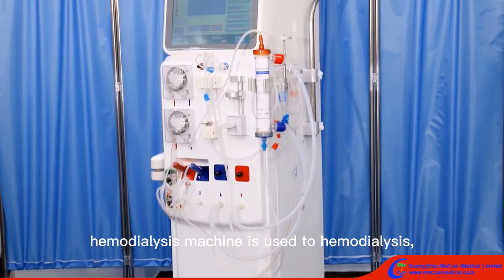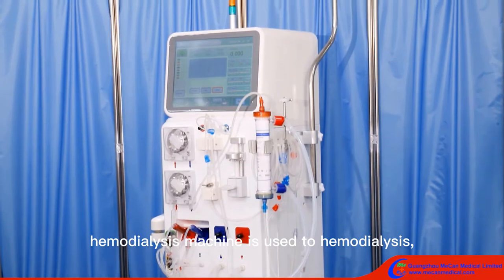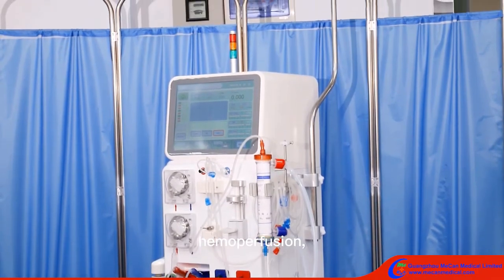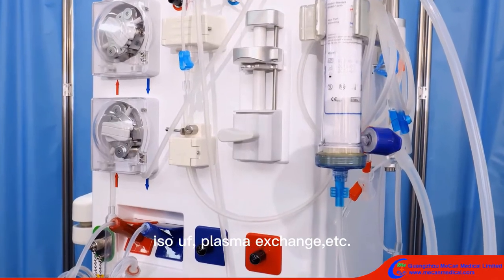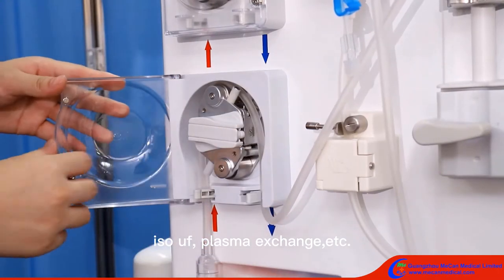The hemodialysis machine is used for hemodialysis, hemoperfusion, ISOUF, plasma exchange, etc.